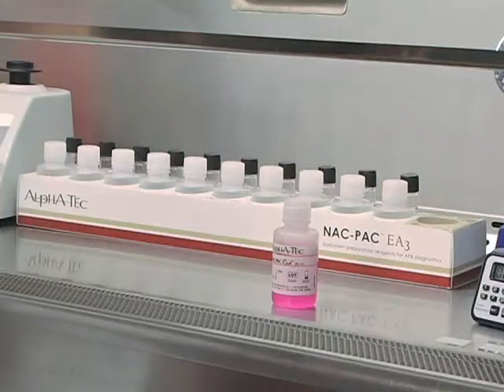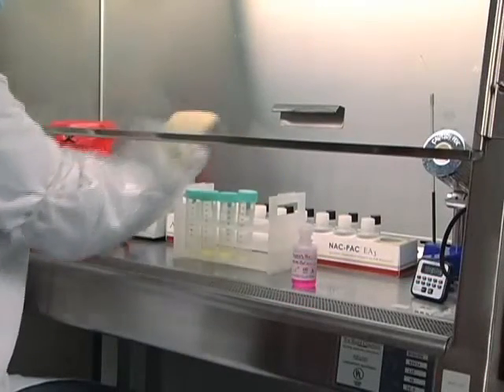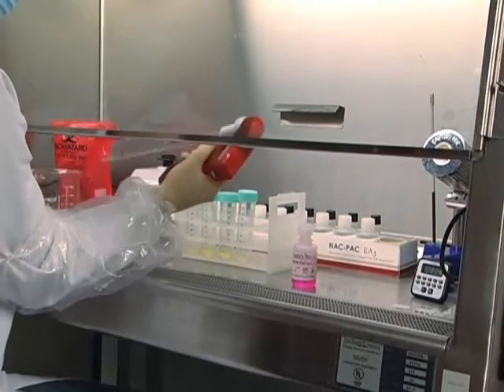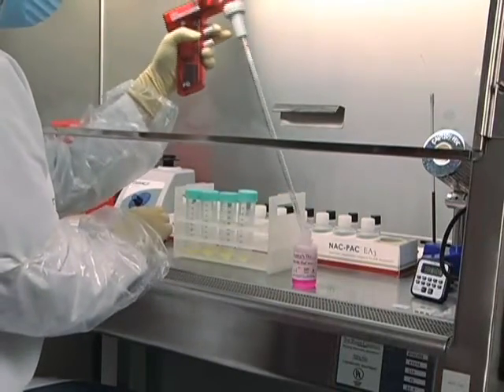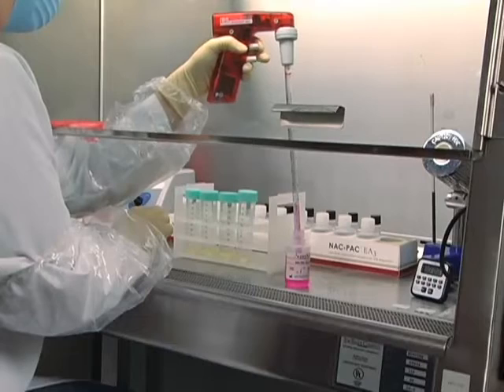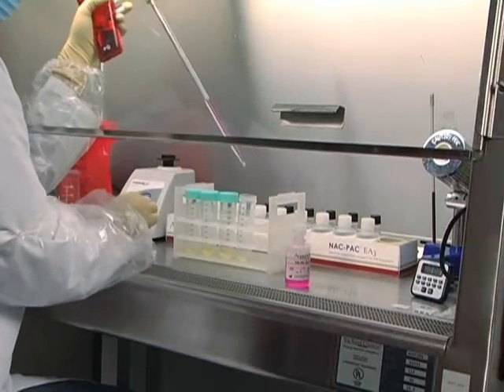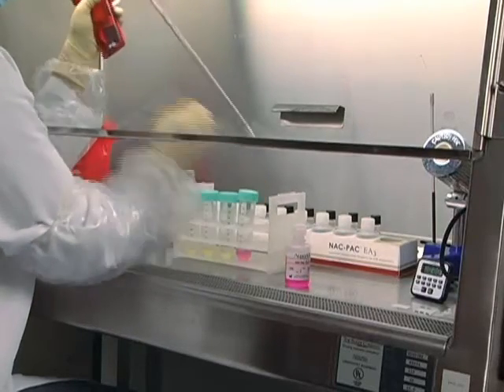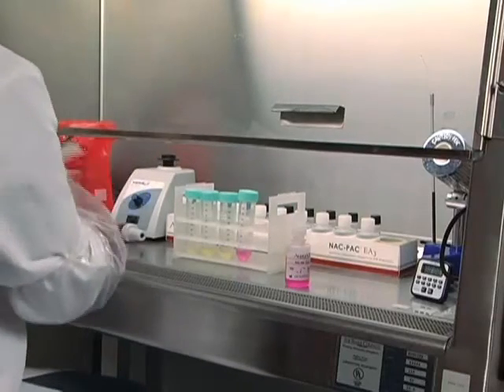Any residual NALC powder contained in the ampoule can be disposed of without rinsing. Using a sterile, disposable pipette, add NACPAC Red-based digestant to each patient's specimen. For specimens that are 1 to 5 milliliters in size, add a volume equal to that of the specimen volume. For specimens that are 6 to 7 milliliters, add only 5 milliliters. If you receive a large specimen between 8 to 10 milliliters in volume, add an equal volume of NACPAC Red and split the sample evenly into two 50 milliliter centrifuge tubes after the decontamination period. The volume of sample and digestant must be measured precisely to ensure proper neutralization.